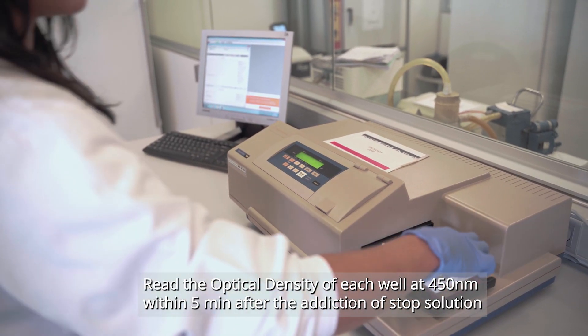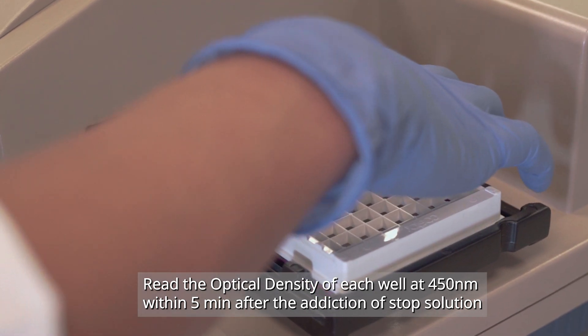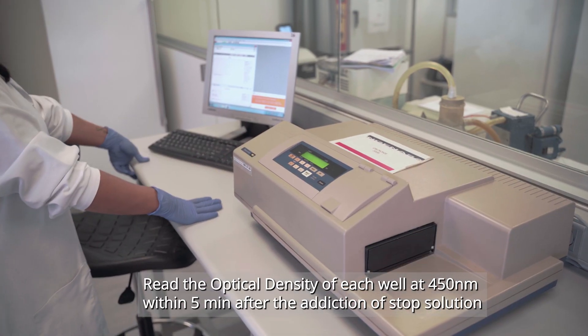A non-coloured well represents a positive sample. A yellow well represents a negative sample.